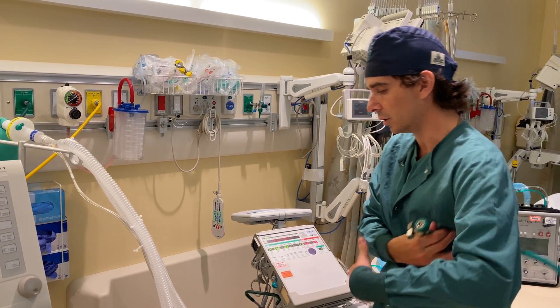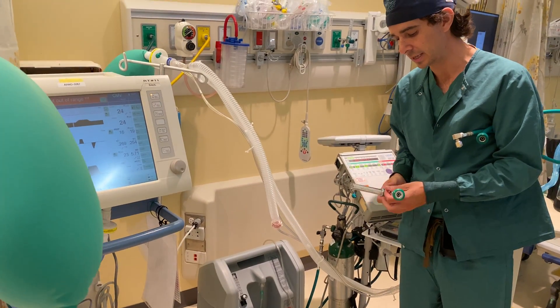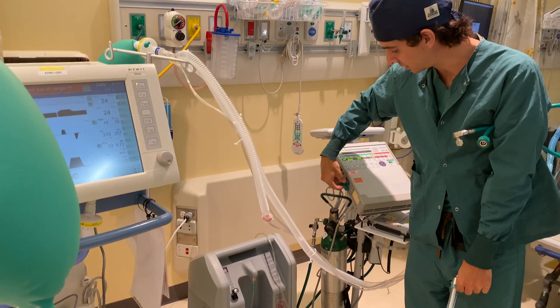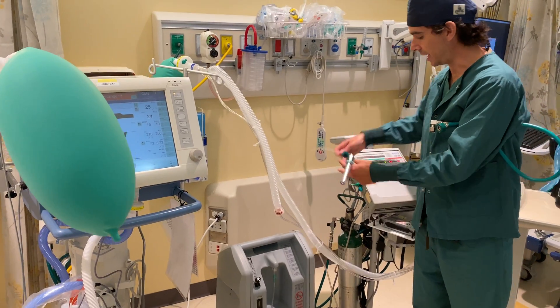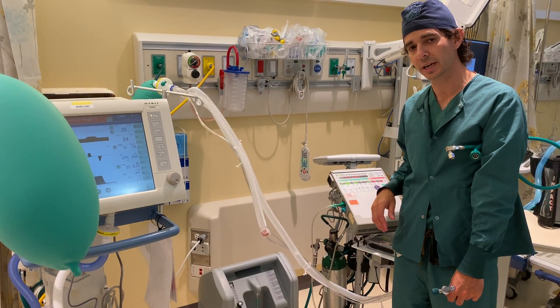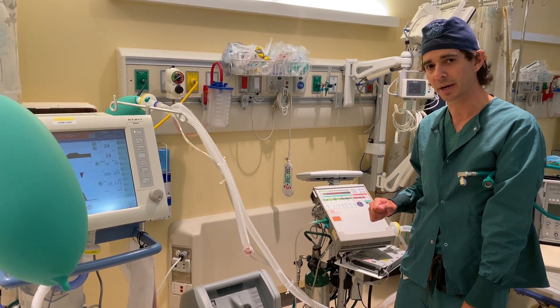Or I can use a low-flow oxygen source, such as what we have here, which is an oxygen concentrator. Generally these run between 5 and 10 liters per minute. I can take the Christmas tree tapered adapter off of a standard Thorpe tube, connect that to the oxygen inlet here on the LTV, and then with smoothbore oxygen tubing, connect that straight into my low-pressure oxygen source. If I run that at 5 liters per minute, I can deliver about 50% oxygen concentration. If I run it at 10 liters per minute, which some of these are capable of doing, I can get up to about 70–75% inspired fraction of oxygen.